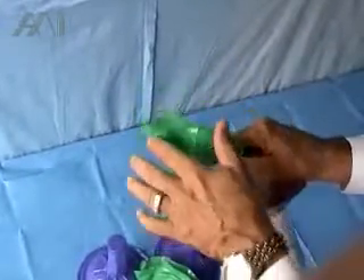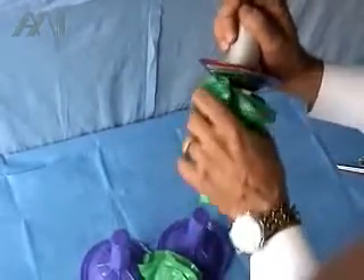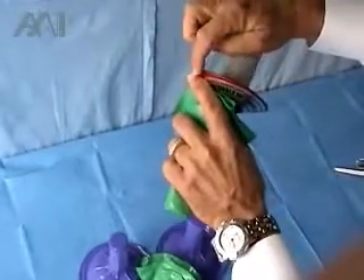The current covers are tapered, so when you try to put it over the light with friction, it slips — there's no support. Your gloves now got contaminated.